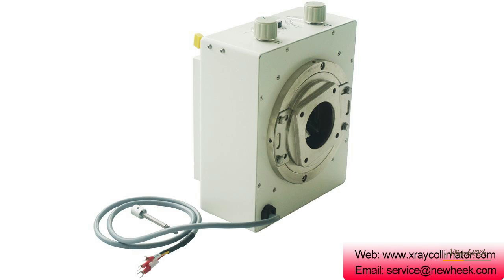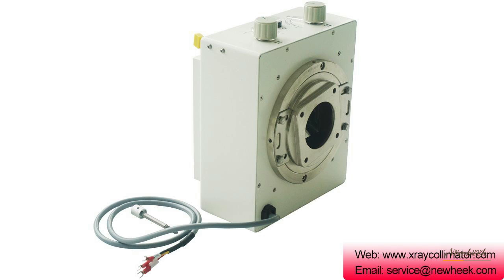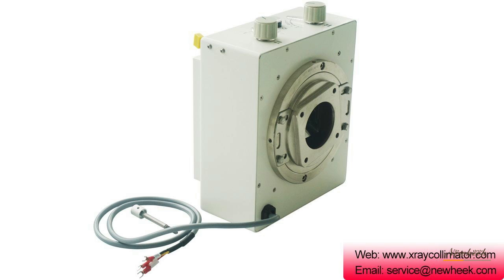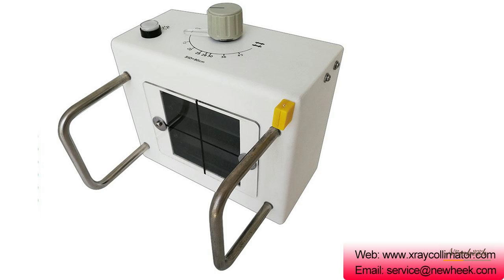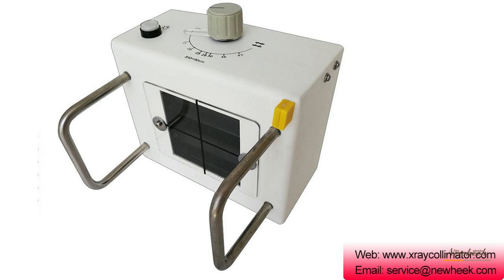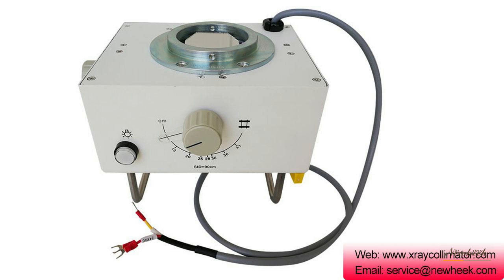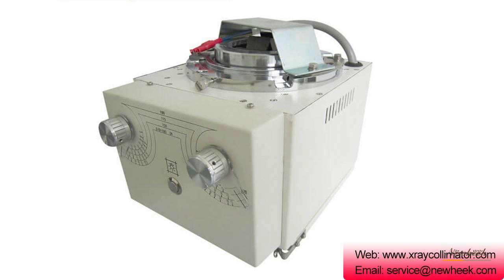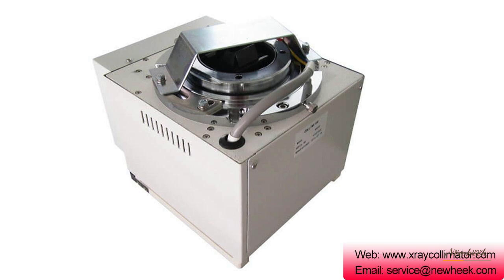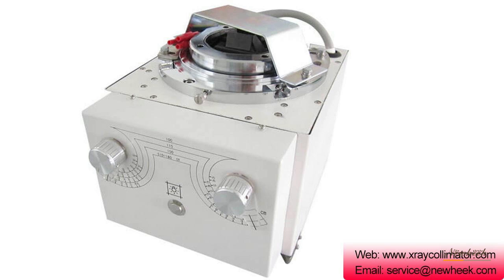The manual X-ray collimator can be divided into three types: NK-102, NK-103, and NK-202. The NK-102 is a general-purpose collimator for X-ray machines with a 125 kilovolt X-ray tube. The NK-103 is designed for portable X-ray machines and connects to 125 kilovolt X-ray tubes. The NK-202 is designed for various X-ray machines, connecting to 150 kilovolt X-ray tubes, with a maximum X-ray imaging size of 17×17.